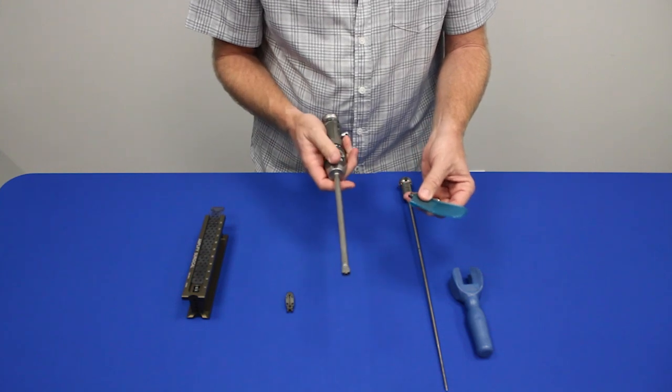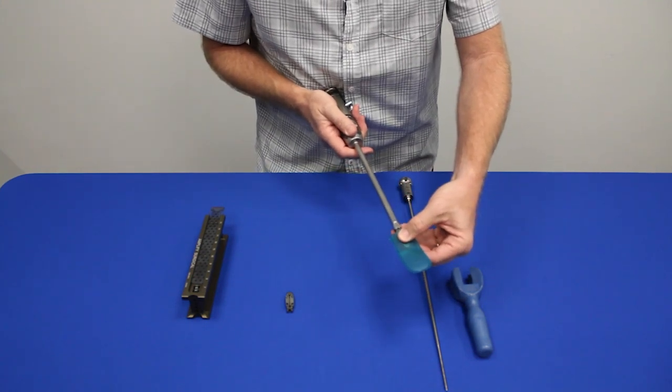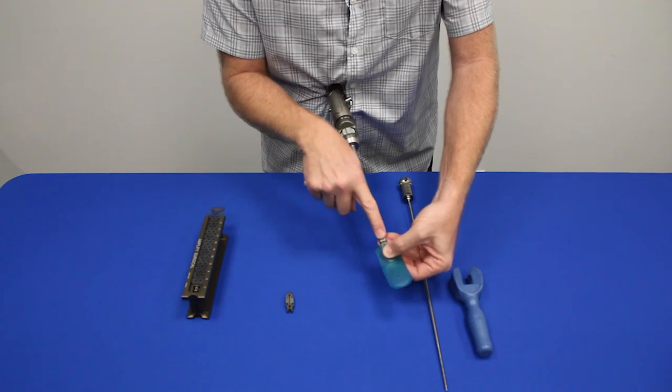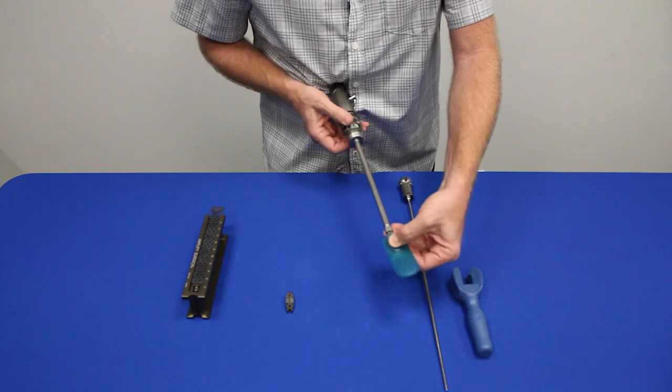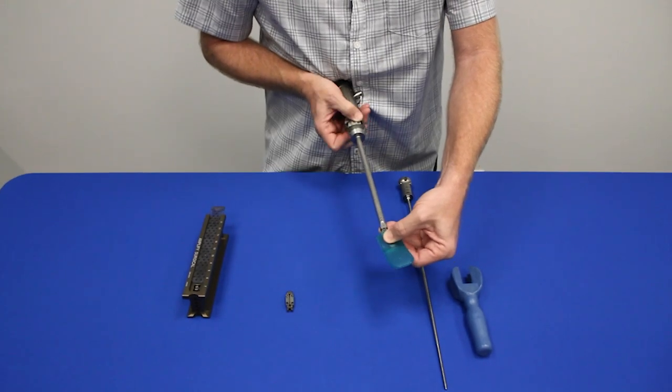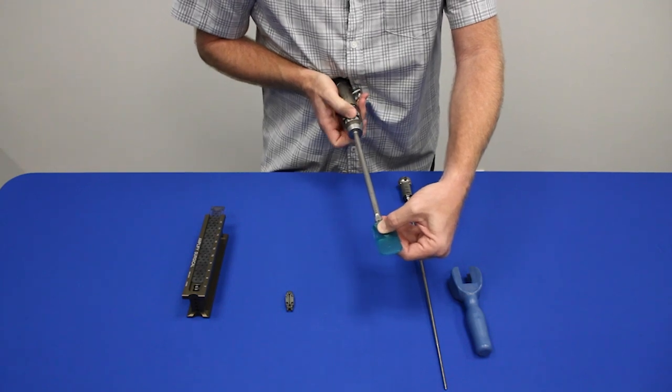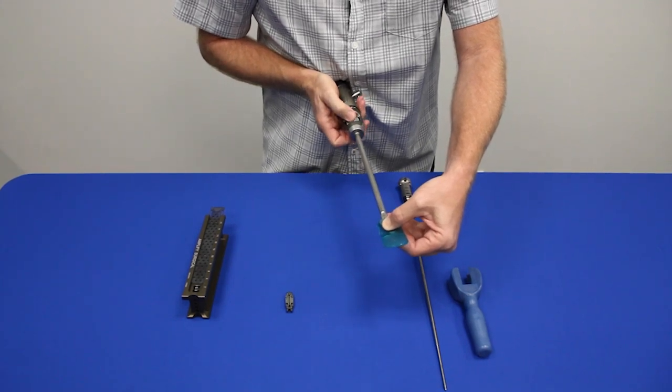Loading it is pretty straightforward. Put this up against your belly. You load the implant where there's no space between the implant and the outer tube and you tighten this gray thumb wheel until it's finger tight.